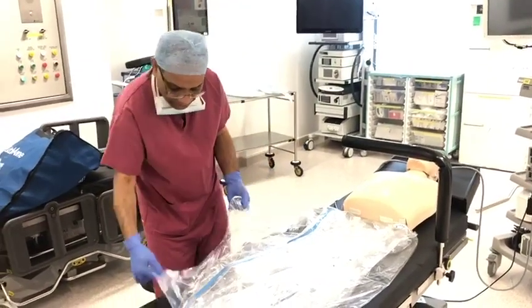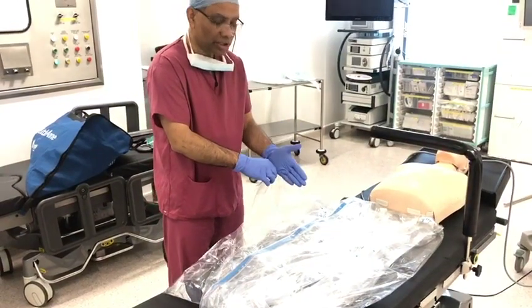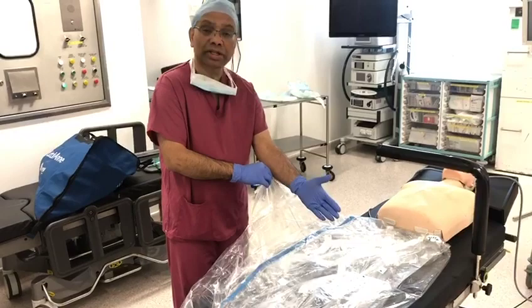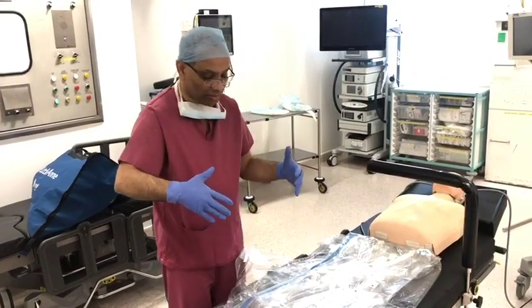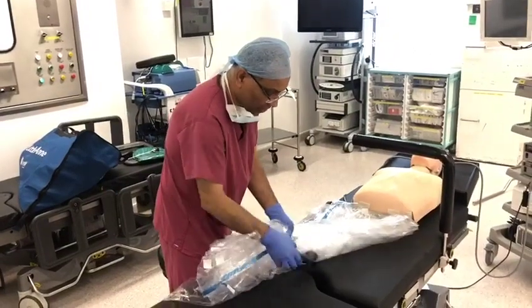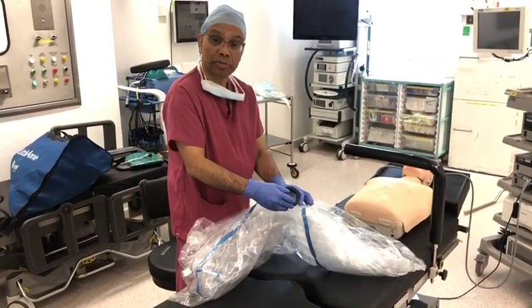The other eye-piece attachments can be slit and you can slide each arm through that. Once you slide the arm, you can put some sterile adhesive drape around it so your arms are firmly within the drape. It also has an attachment to cover the lens, which acts as a port.